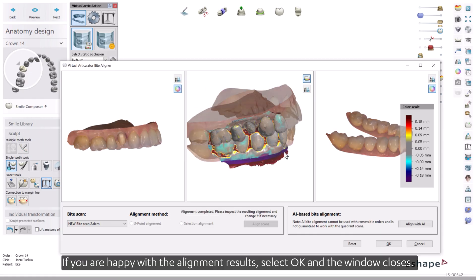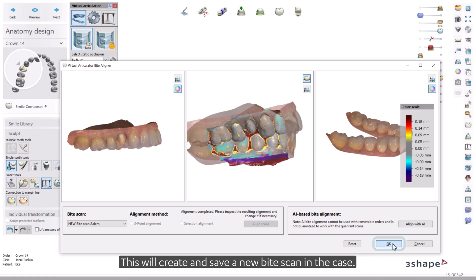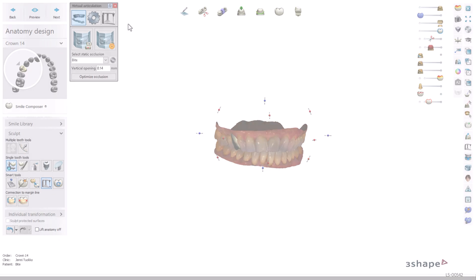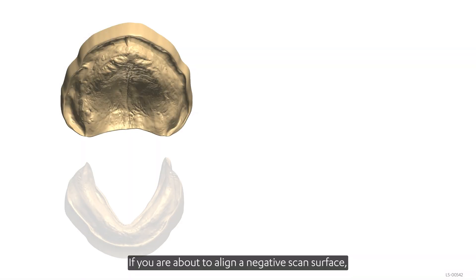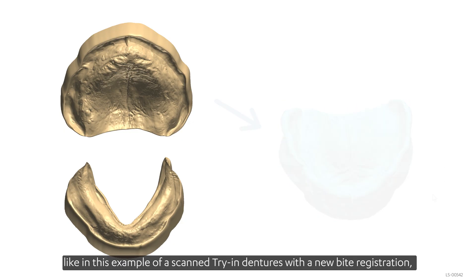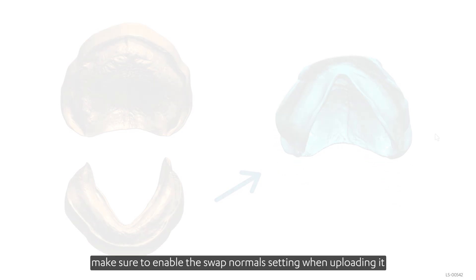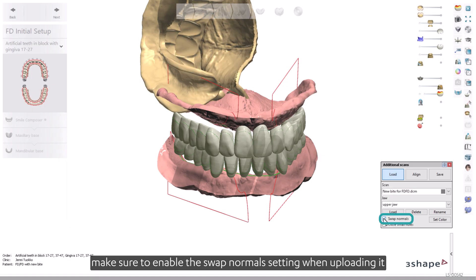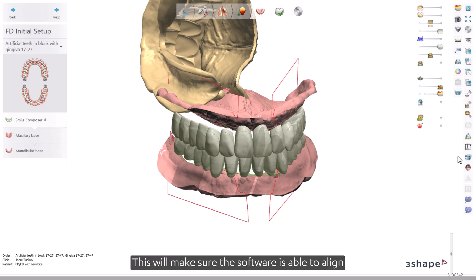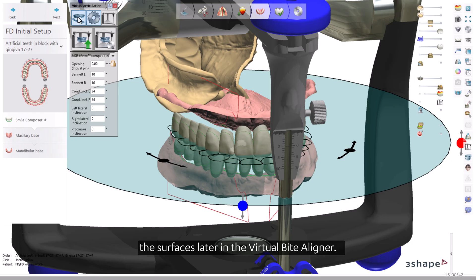If you are happy with the alignment results, select OK and the window closes. This will create and save a new bite scan in the case. If you are about to align a negative scan surface, such as an impression to a positive surface model, like in this example of a scan try-in dentures with a new bite registration, make sure to enable the Swap Normal setting when uploading it with the Additional Scans tool. This will make sure the software is able to align the surfaces later in the Virtual Bite Aligner.